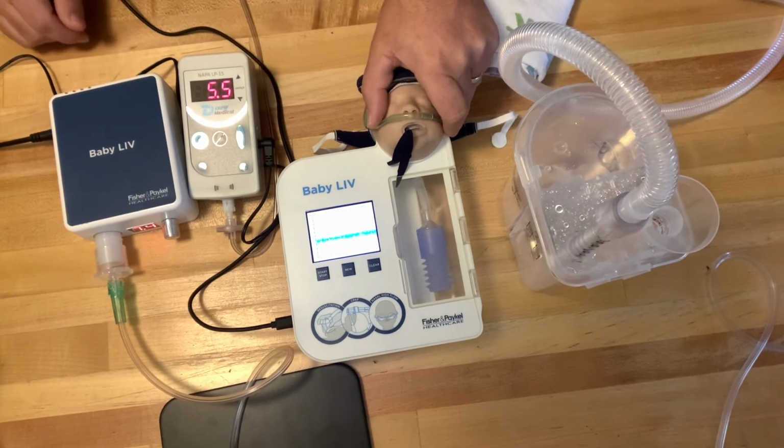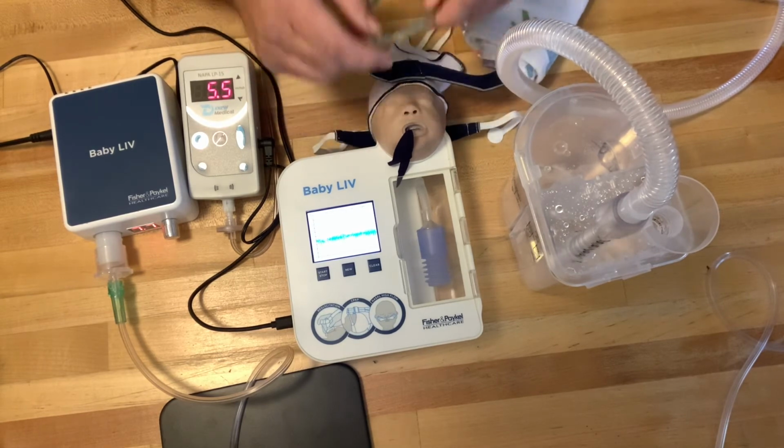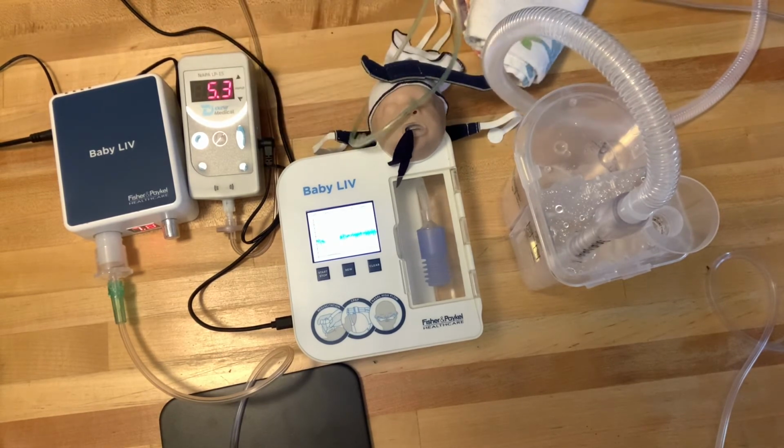So the vibrations have also been reduced dramatically when you change the interface. Bottom line is, even though we're getting a CPAP pressure, it's not what was prescribed. The prescribed is 5 centimeters, and all those vibrations have been completely eliminated when you put a cannula into a CPAP system. So that is the why, or what happens, when we change the interface.